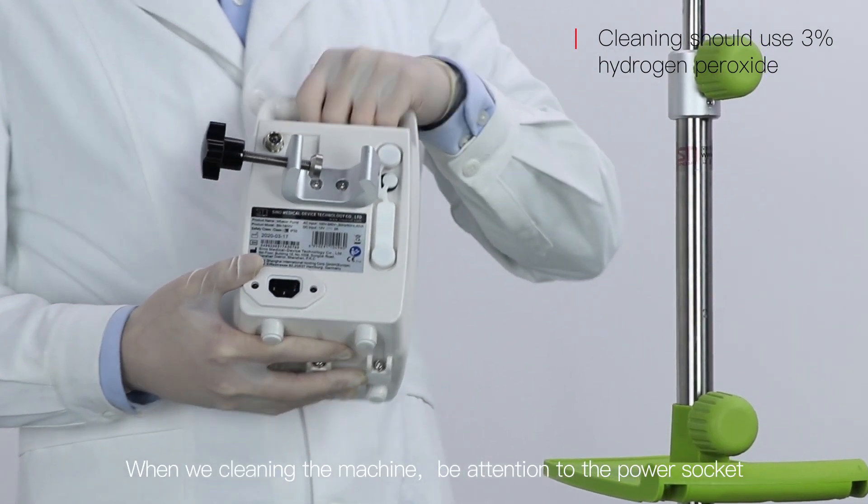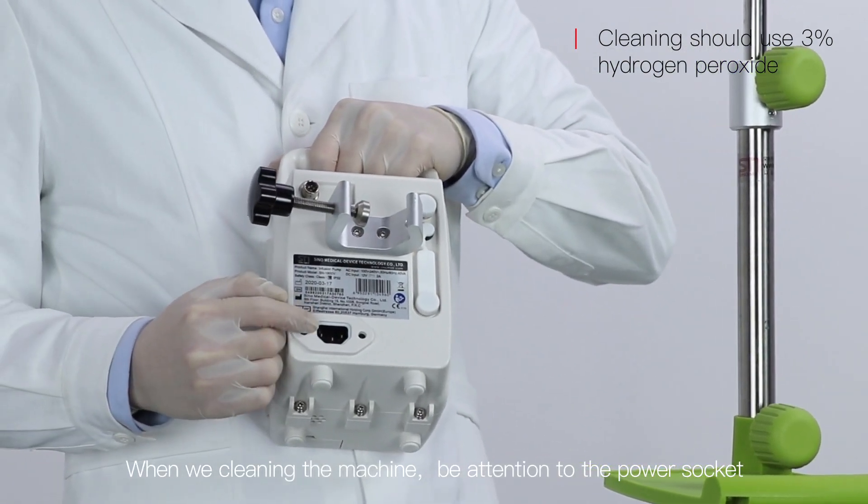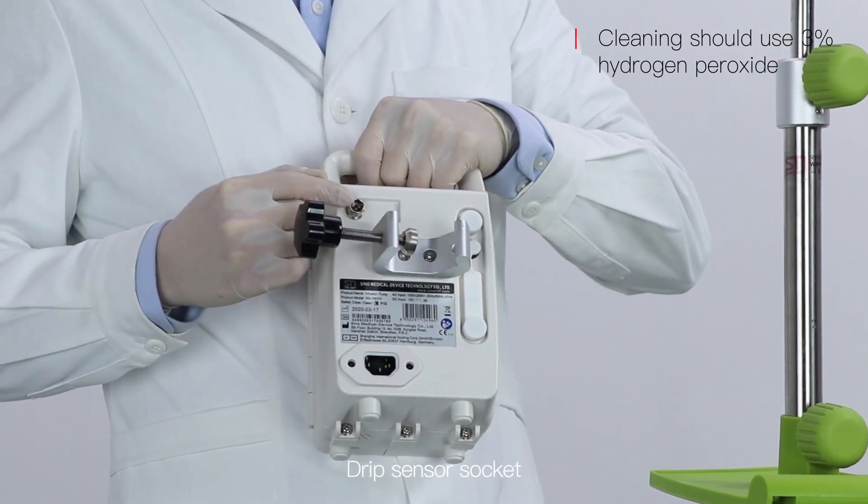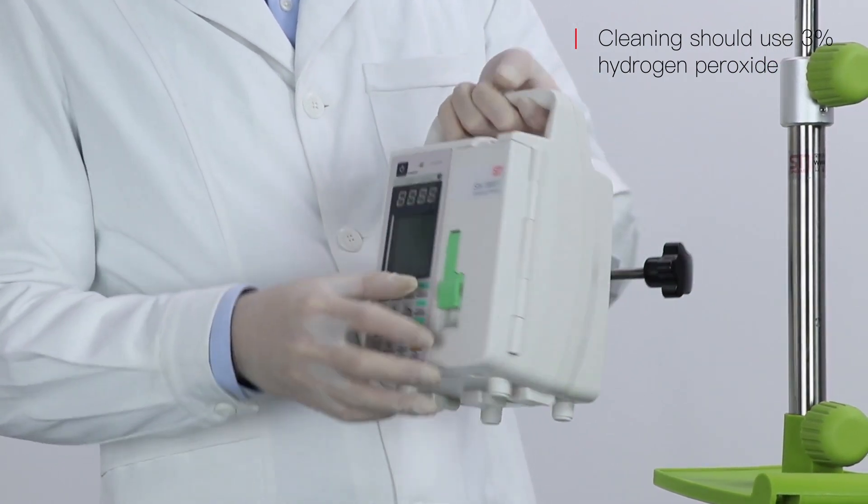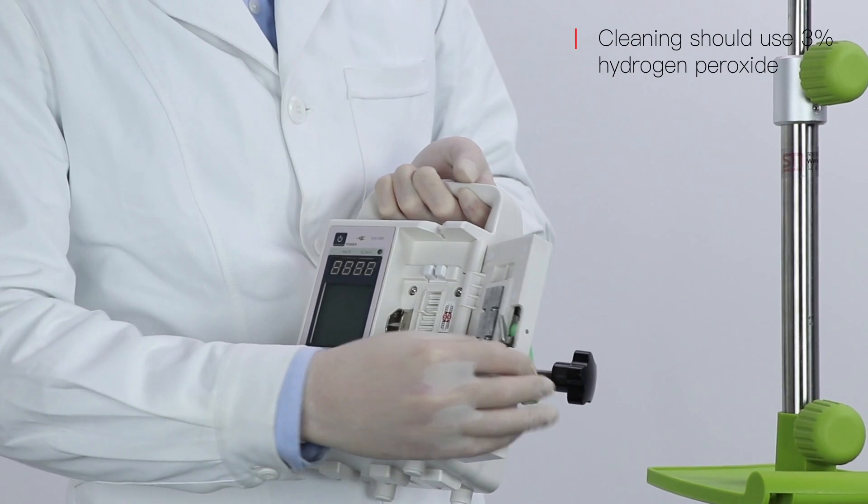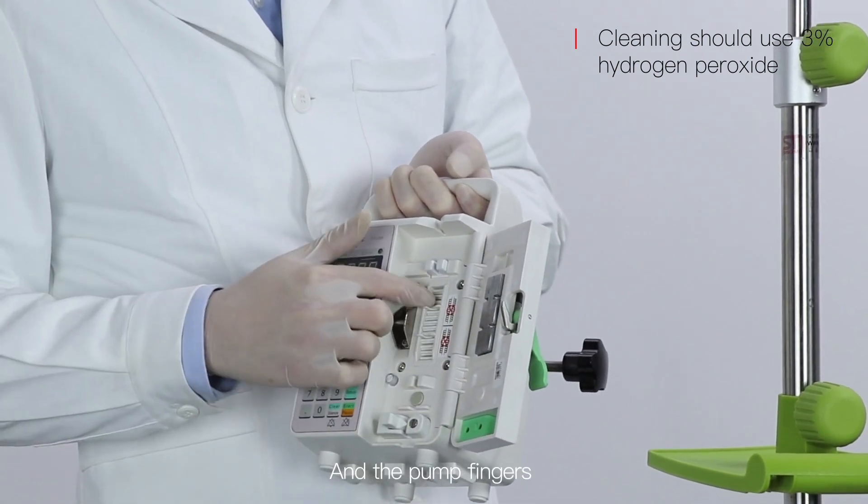When cleaning the machine, pay attention to the power socket, drip sensor socket, door handle, and the pump fingers.